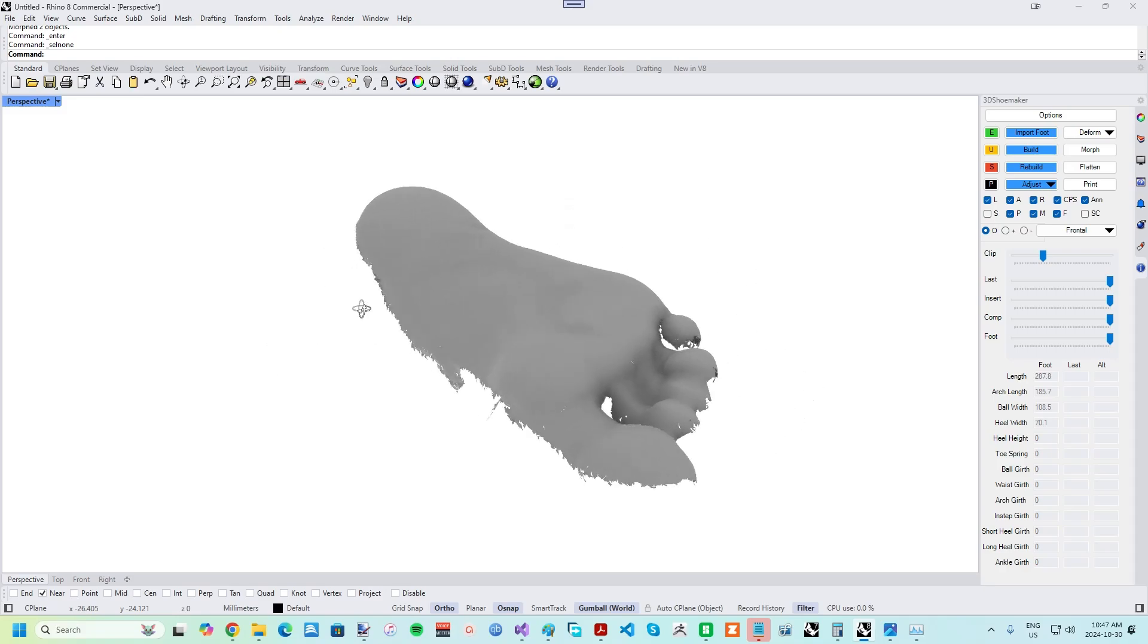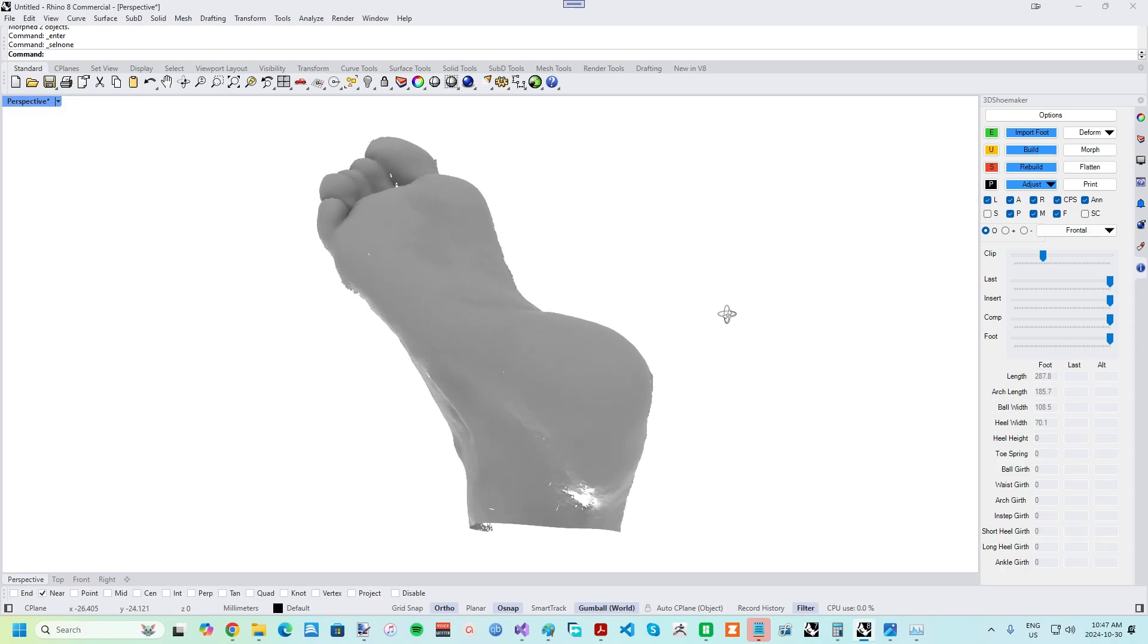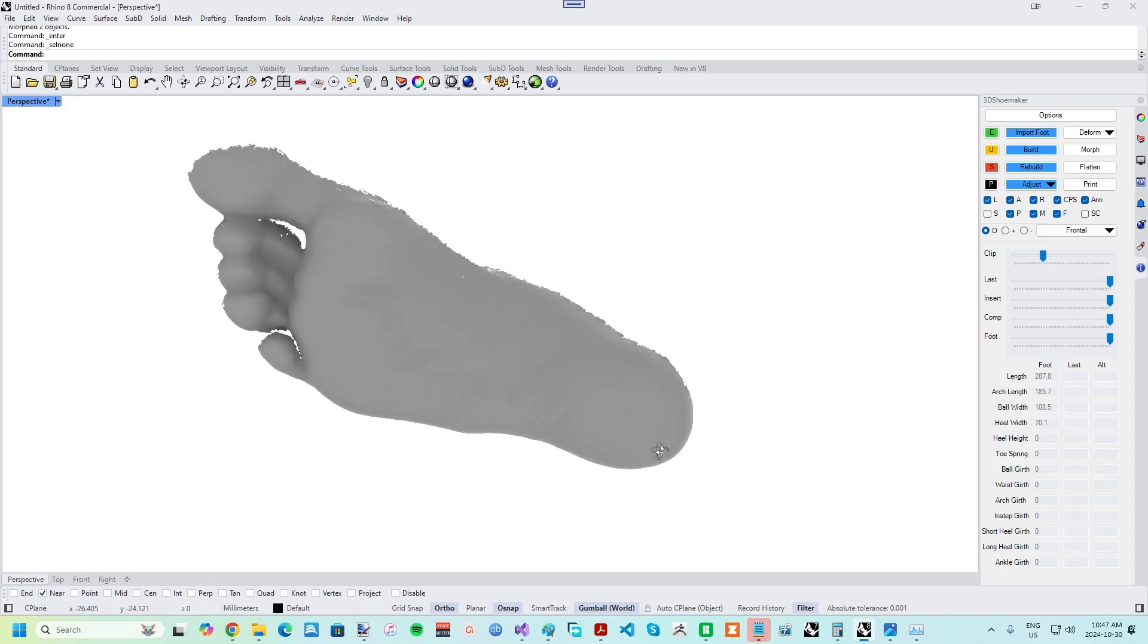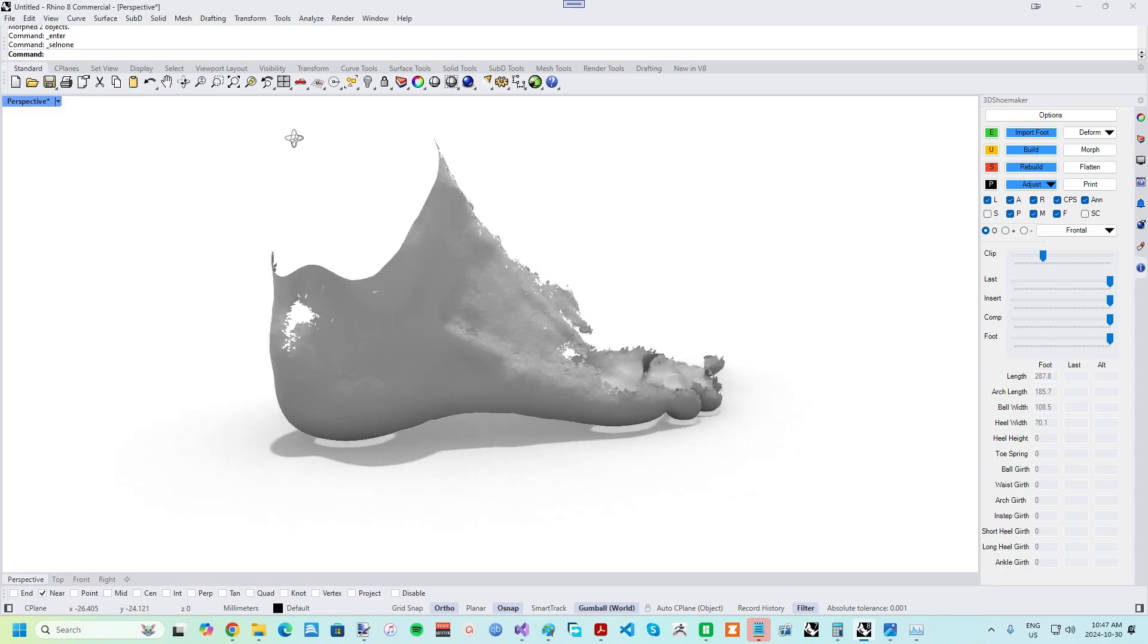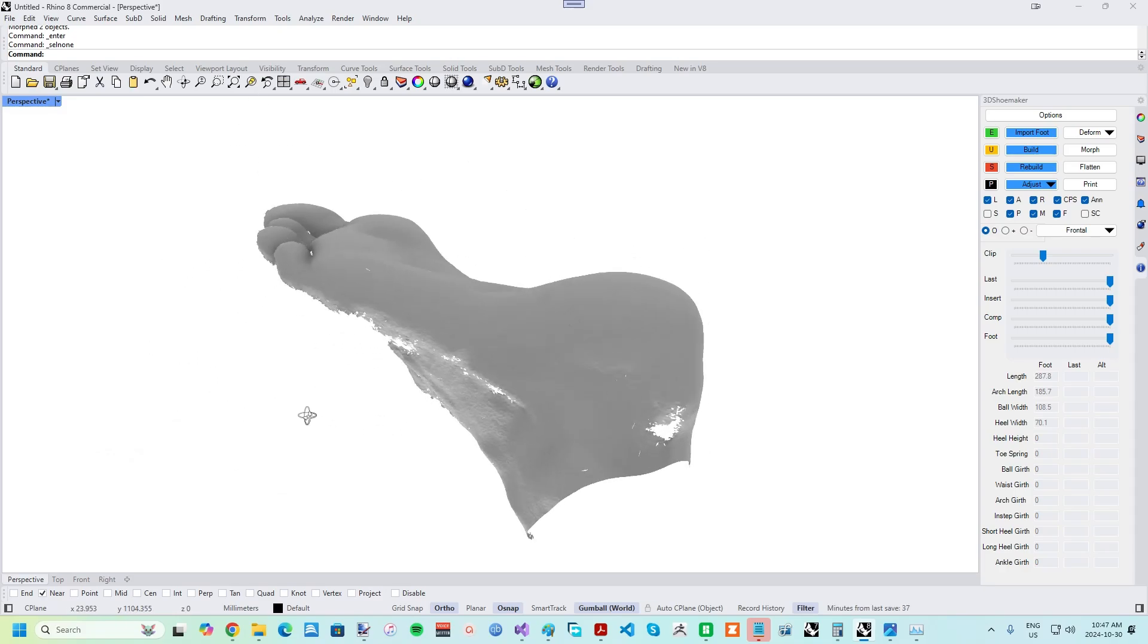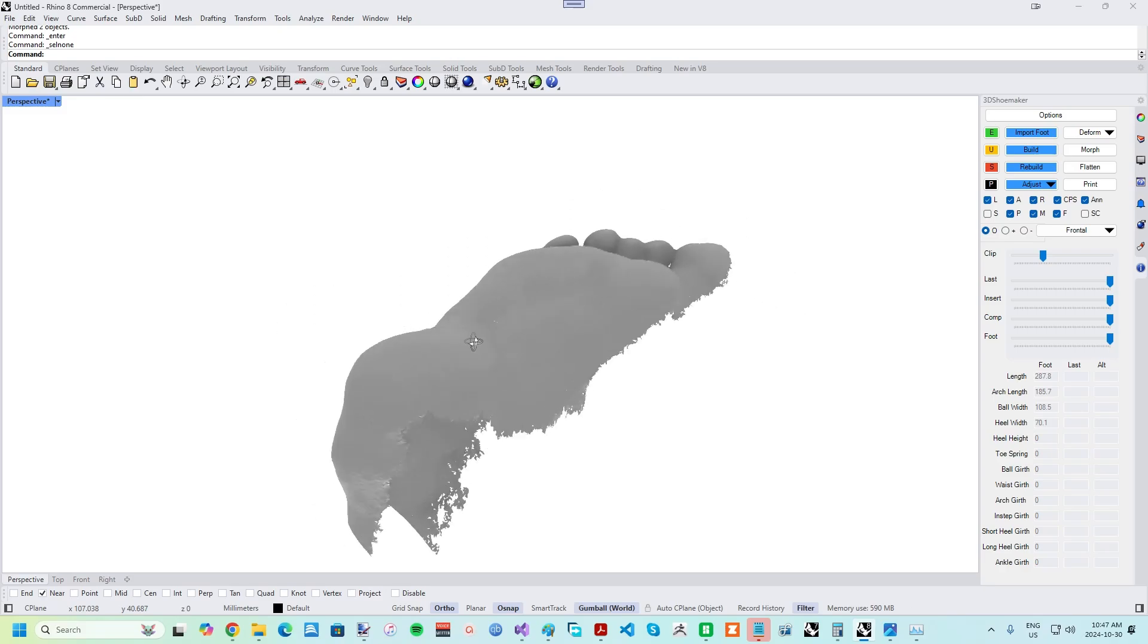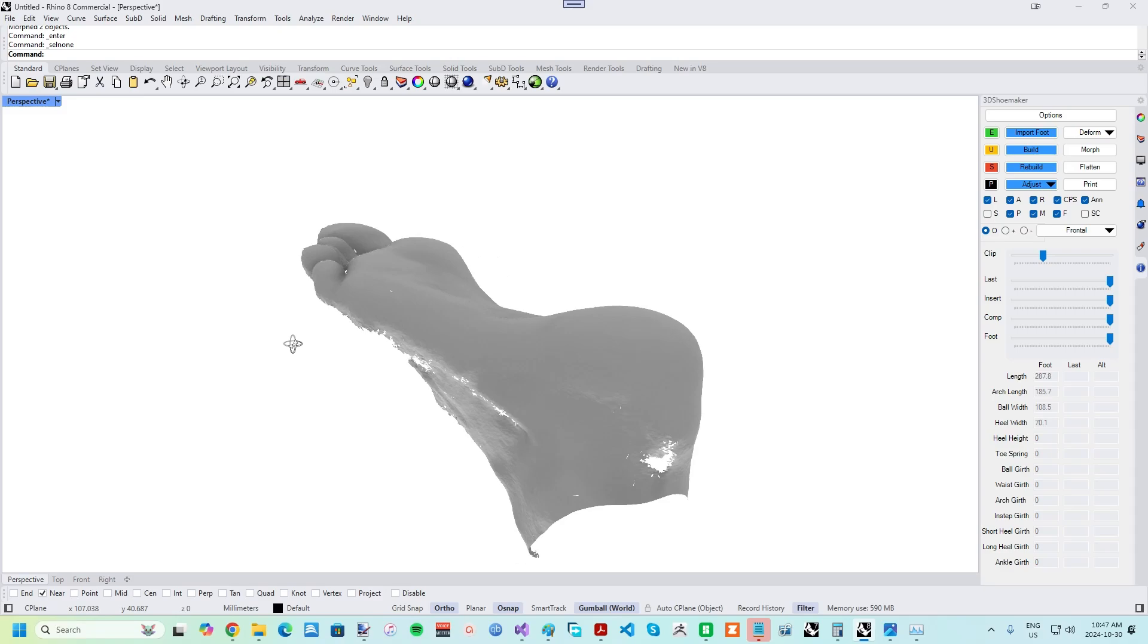To use the vacuum forming tool, a foot model has to be imported, so I'll give a quick refresher on how to do that, specifically with a plantar foot scan. Plantar foot scans are incredibly easy to capture. All you need is something like most modern iPhones, combined with a scanning app leveraging the TrueDepth camera, such as the Scandi app.